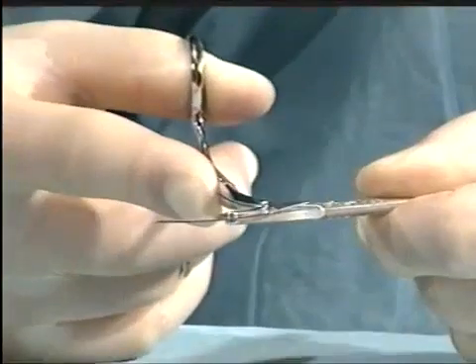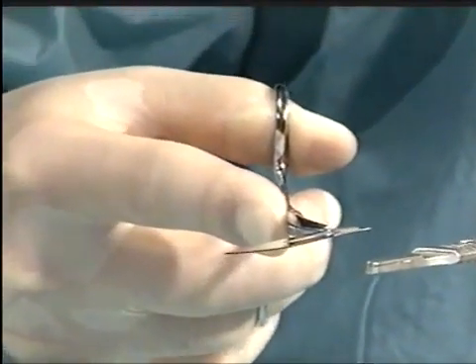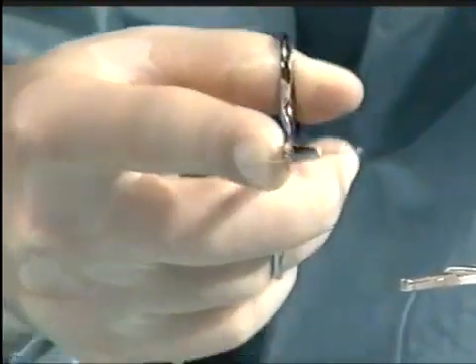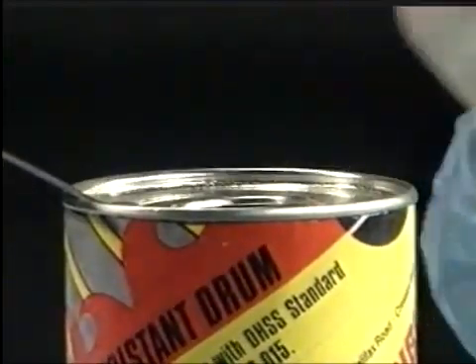When it comes to removing the blade, just lift it off from the distal end and slide it off gently without jerking it. Then almost immediately place it in the sharps bin that should be provided.